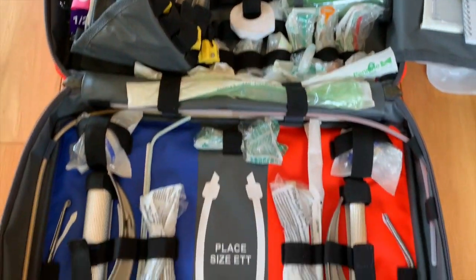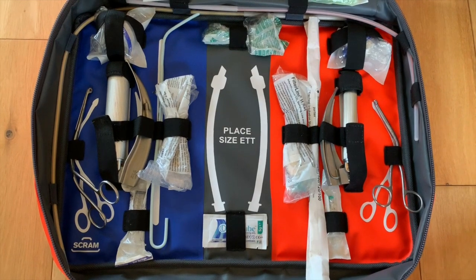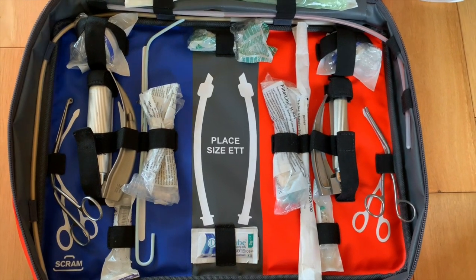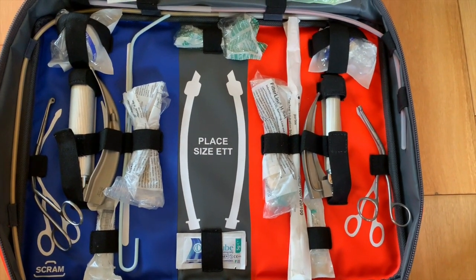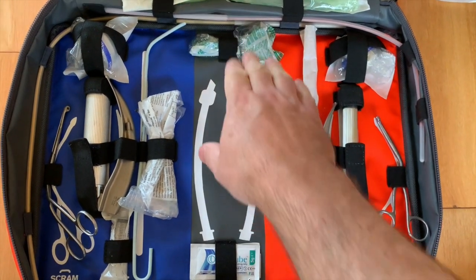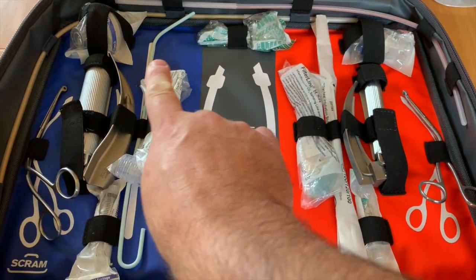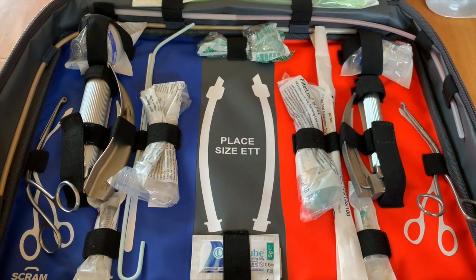Moving back to the primary work area, this consists of two kit dumps. On the left we have all of the equipment required for a large child, and on the right we have all the specific equipment needed for a smaller child, with things that are common to both down the middle, and then the bougies for the larger child and the smaller child running along the spine.